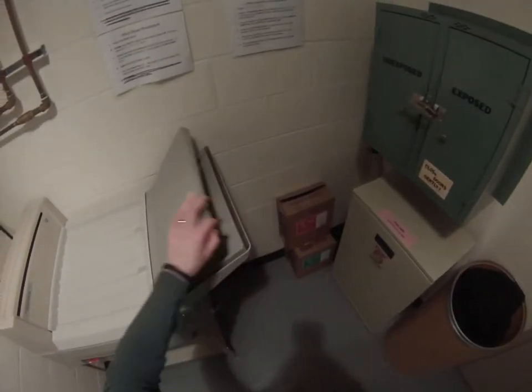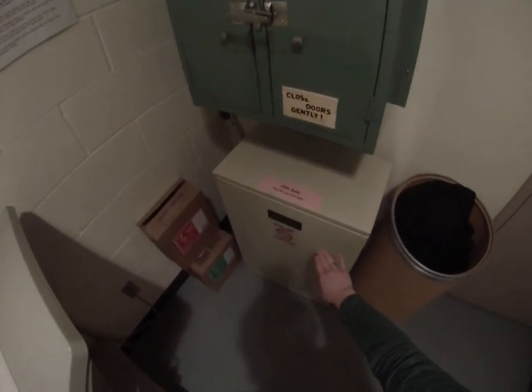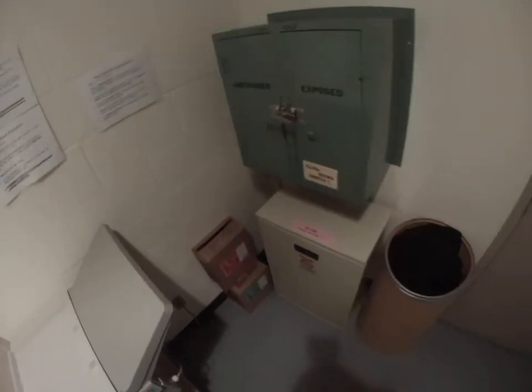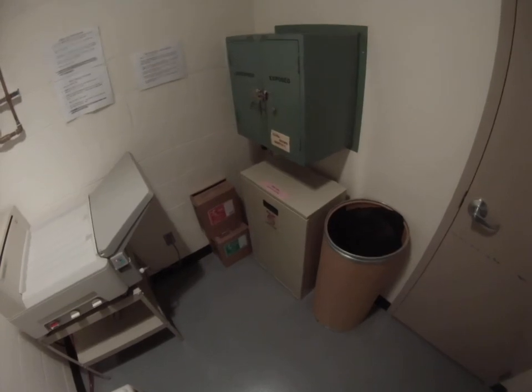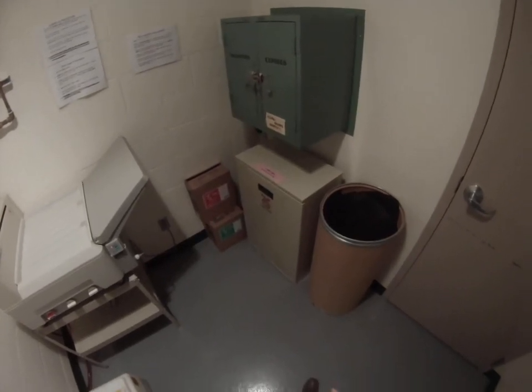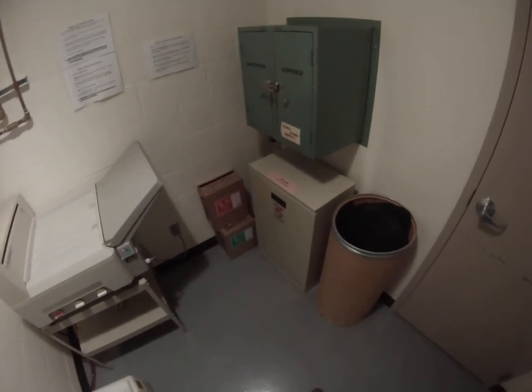There's the beep, which means we could now place another piece of film through. Back to the film safe — there are small, medium, and large film within cardboard boxes, and inside the cardboard box in a dark black plastic bag. That dark black bag is to protect the film from light — just one more safety measure.